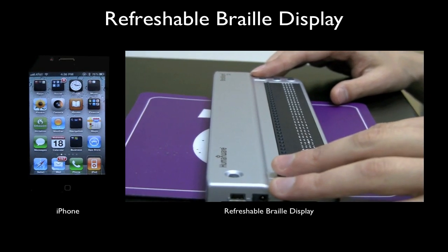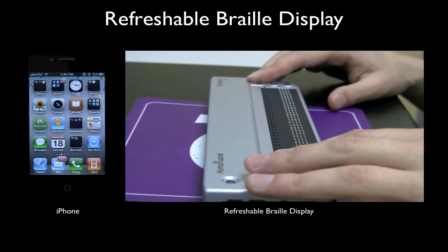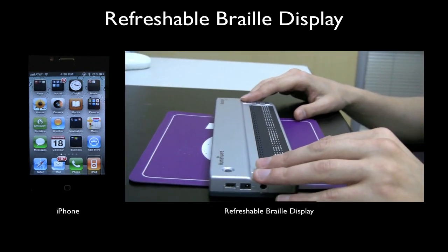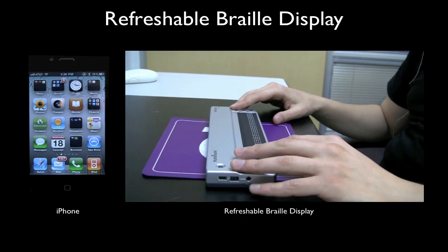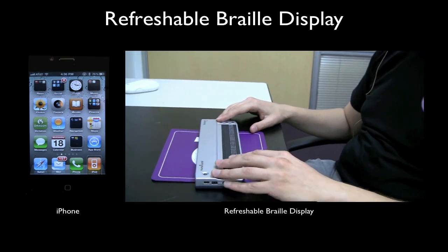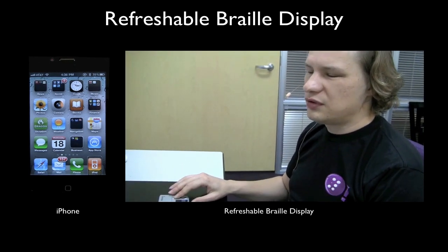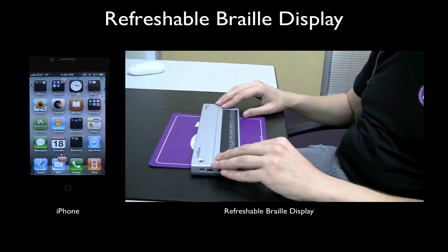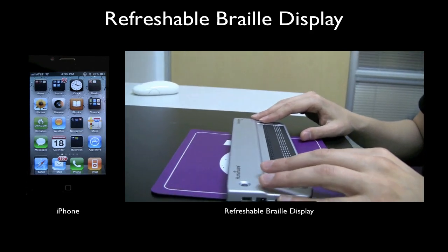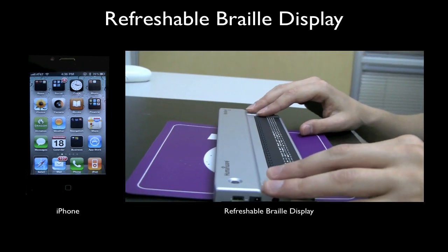Let's do a couple of things with the Braille Display. All of the commands will be performed exclusively by using keystrokes on the Braille Display — I'm not going to be touching the screen of the iPhone at all. For example, if I wanted to go between my icons, I navigate to iPod, Phone, Mail, Safari. I can feel with my fingers the words as they would appear on the screen.